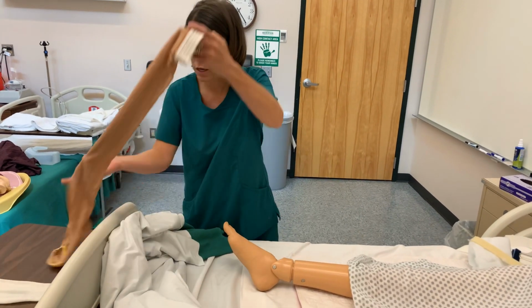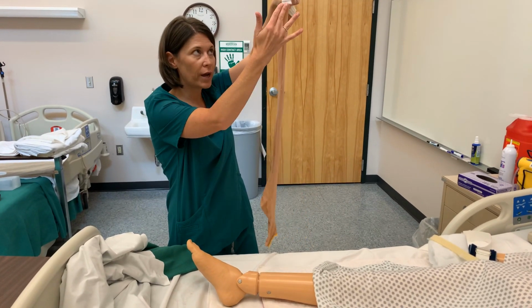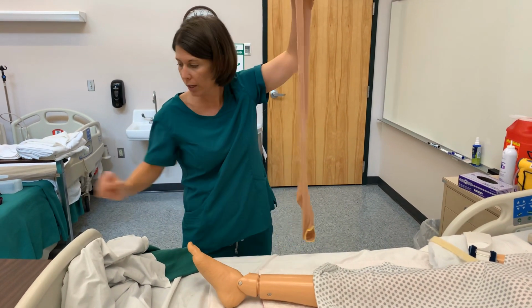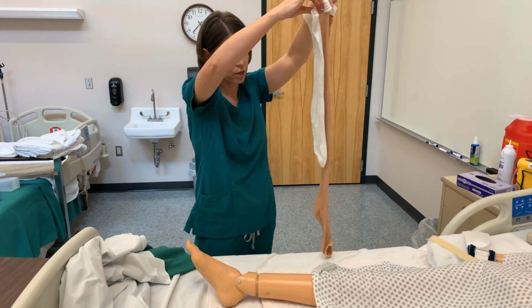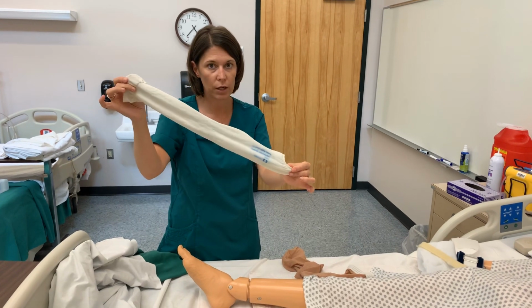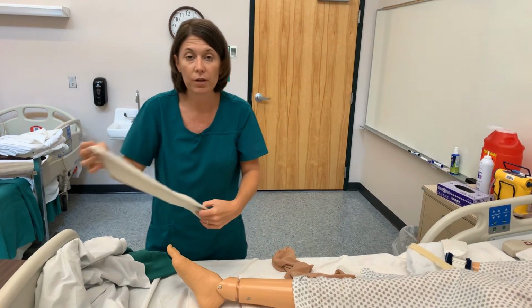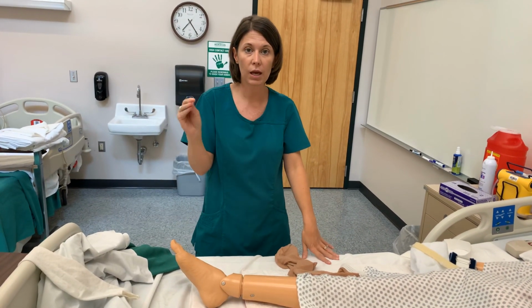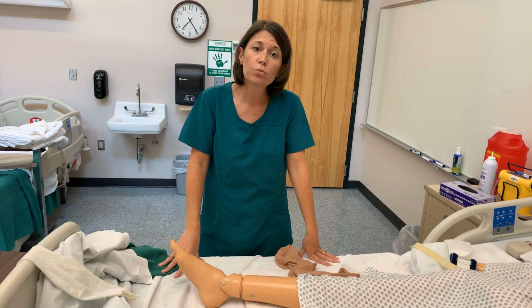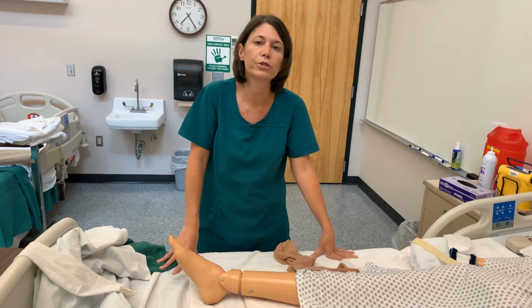So there are different types, okay? This one here that I have is a thigh high. It goes all the way from the client's thigh to their foot, okay? You'll notice it's rather long. If I hold up this one, see how short that is? This is a knee high. So it goes from the knee to the foot. When I am determining what I am going to put on my client, typically it's ordered thigh high or knee high. You'll see how that is specified from the healthcare provider. The other thing is you'll have to do measurements. You don't just walk in there and see the client and, oh, I'm going to put a regular size on them.